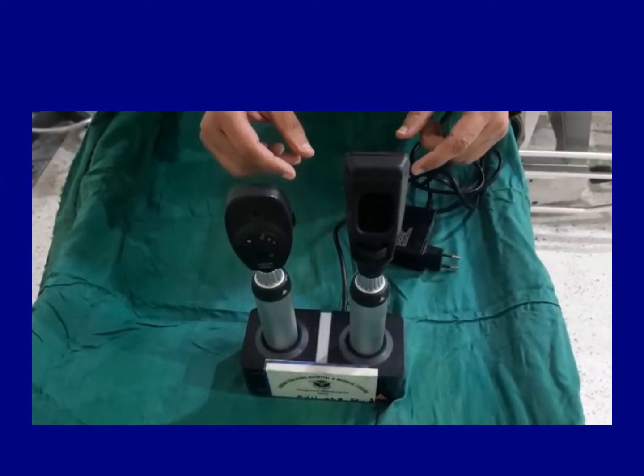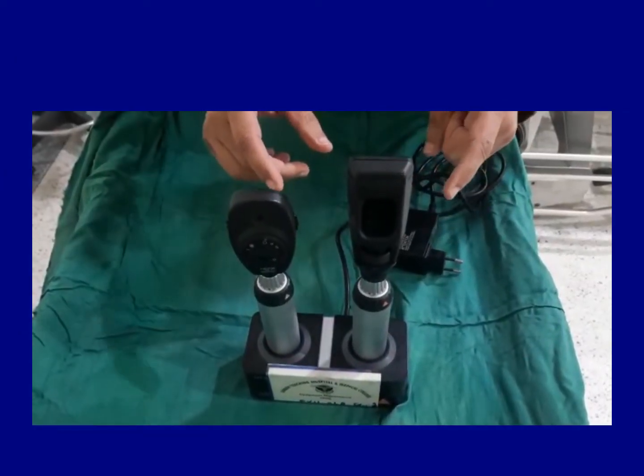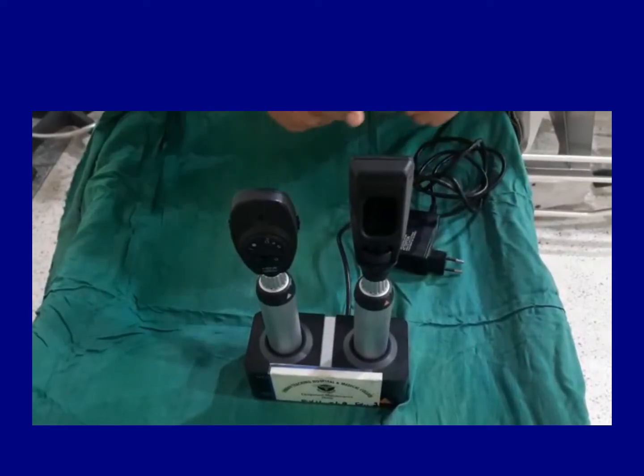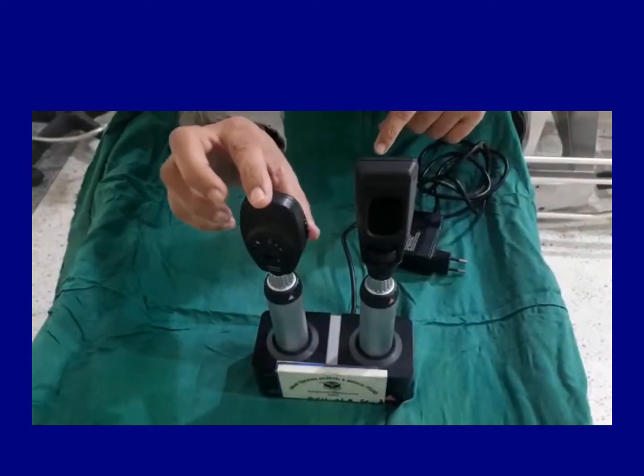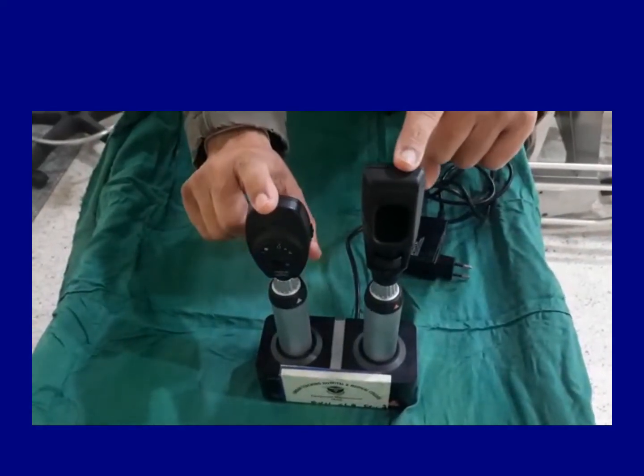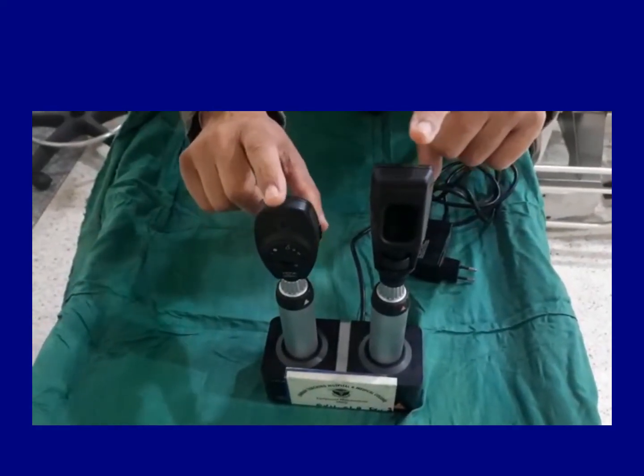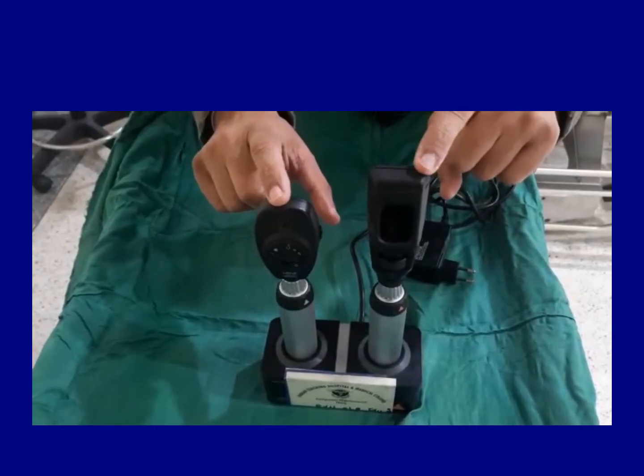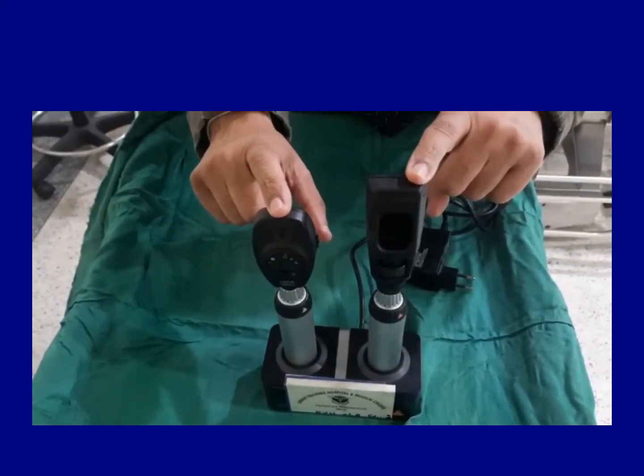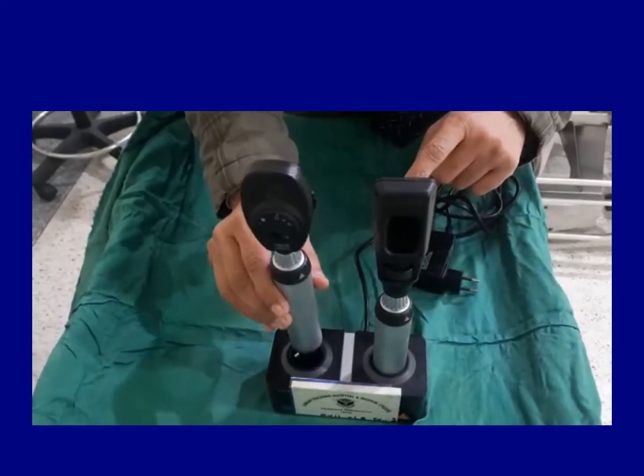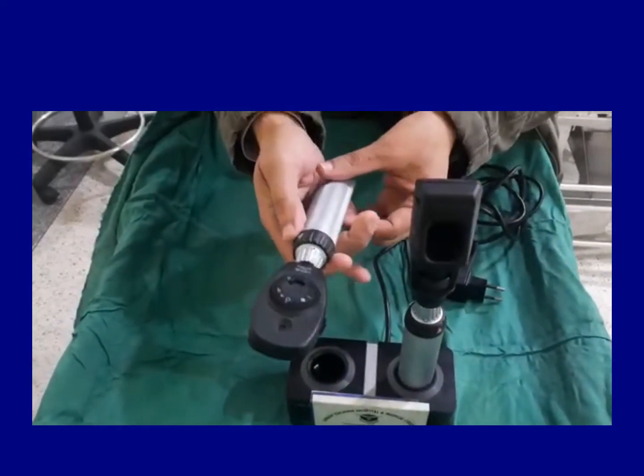Welcome to myiacademy.com. In this video for the TOACS, we are going to describe the ophthalmoscope and the retinoscope. This small one is the ophthalmoscope and this one is retinoscope. Remember the mnemonic: retinoscope for refraction and ophthalmoscope for funduscopy. We are seeing the retina. So first we'll discuss the ophthalmoscope.